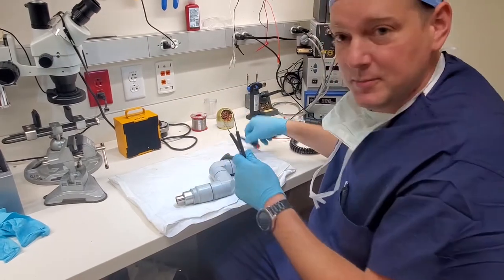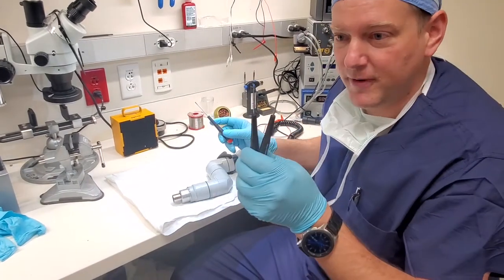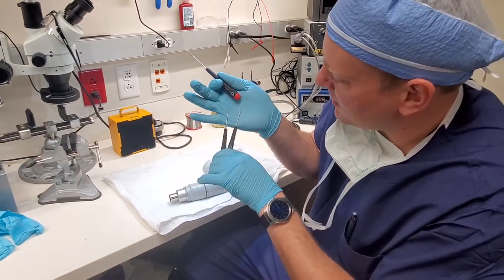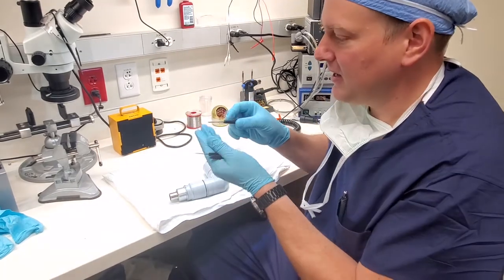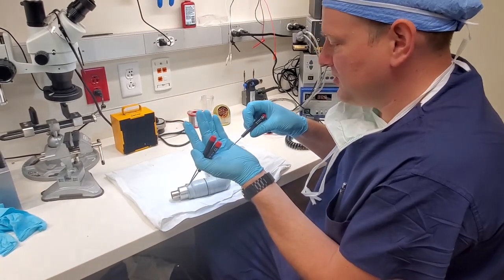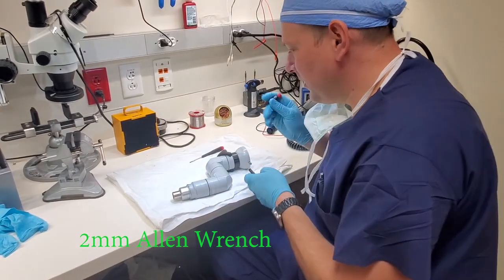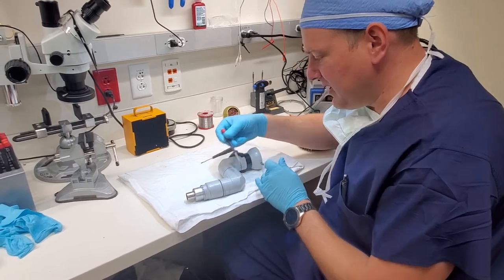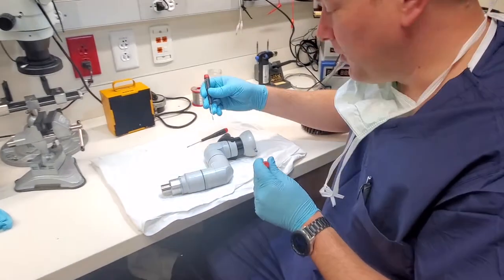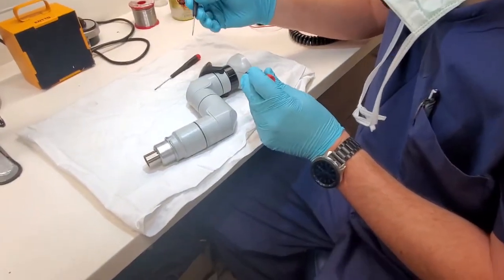The tools you're going to need to pull this guy apart: I used two very small screwdrivers, extremely tiny, and I also used a number 2 Allen. The corner caps right here and right here are removable and this is the access to the entire thing.